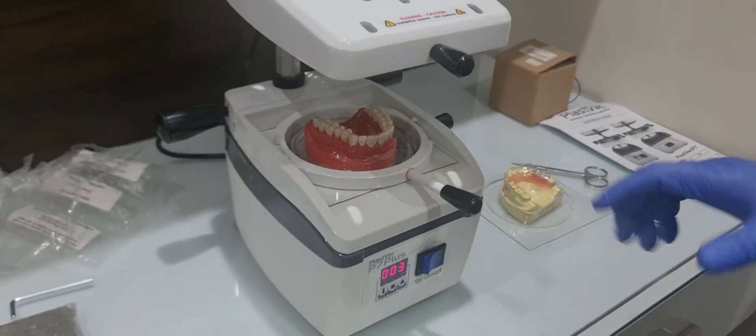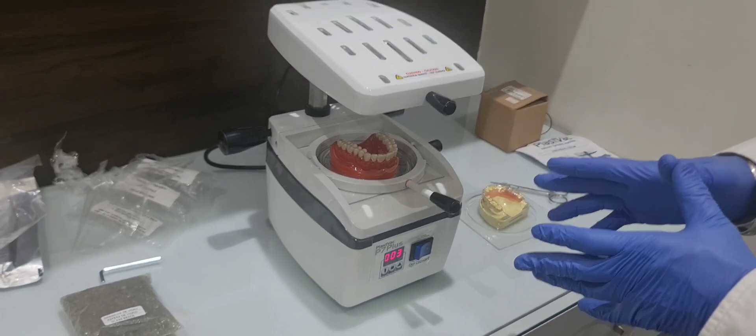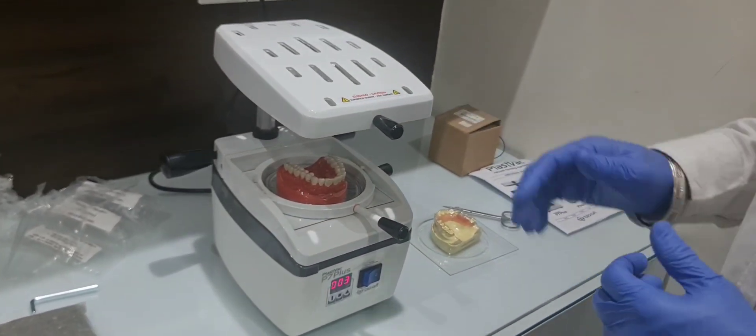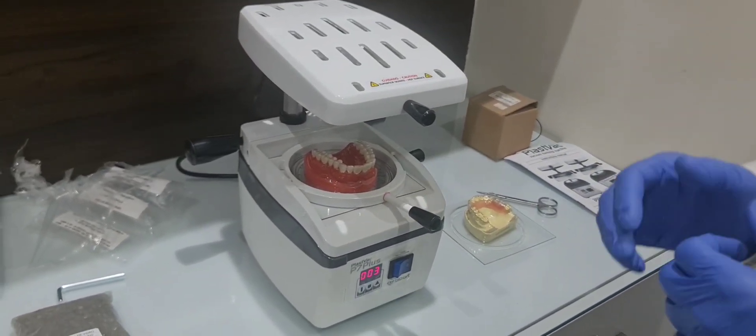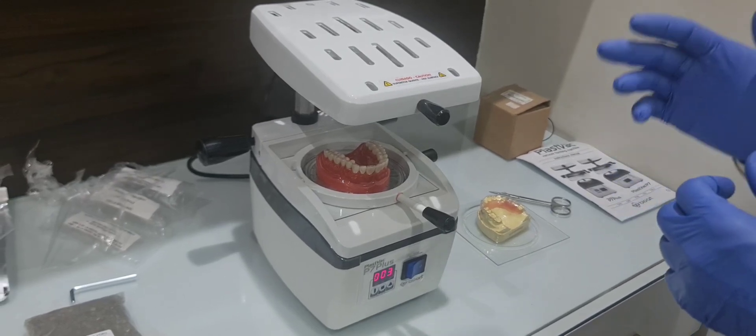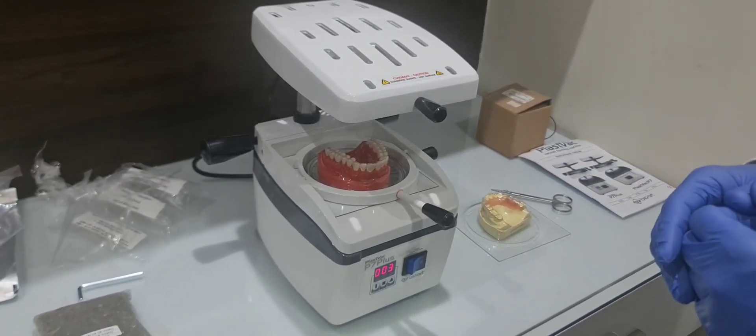Now switch it off. So with this you can use it properly. You can buy this P7 Plus machine from Bioart from our Dedmy website, or you can download our mobile app. Thank you.